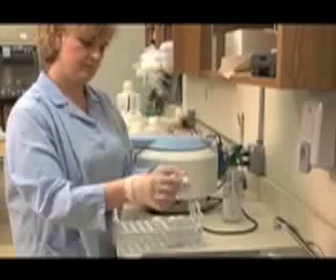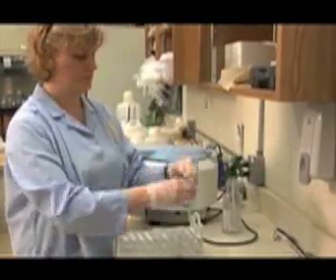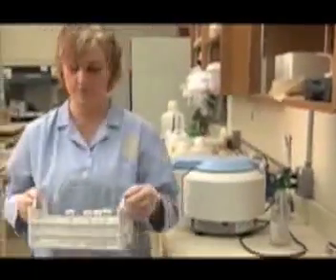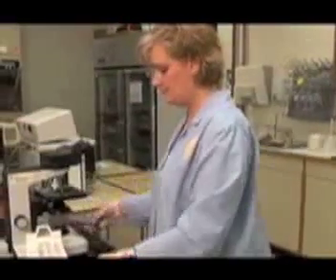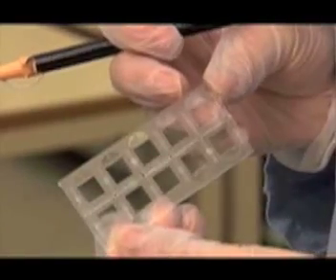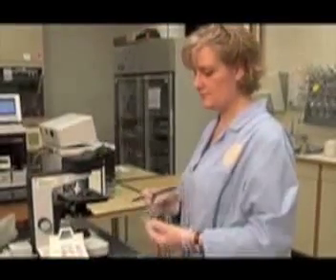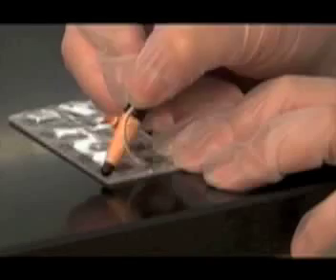Decant the remaining samples, making sure to mix the sediment. When complete, the sediment is ready for transfer to a microscopic slide. The slides used for microscopic examination of urine have 10 positions, one for each different specimen. Label the top of each well with the patient identification number.